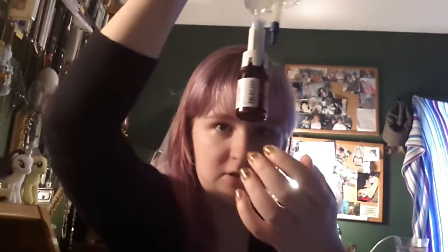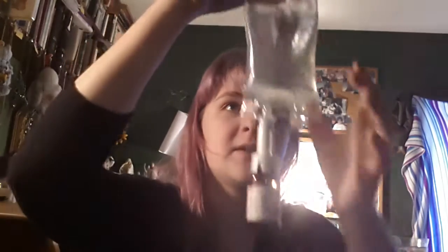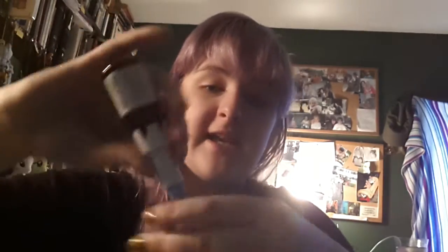So flip it back. There's usually still a tiny bit of liquid left in the vial no matter what you do — I wouldn't worry about that too much. What I like to do, just to make sure none of it goes back in the vial if I squeeze the bag accidentally, is pull the blue and white part apart and take it out of position by clicking it — you can just leave it on. When you're done with it, meaning when the bag is empty, you do want to take it off because it should be put in a sharps container, since it has a needle in both ends. That would be unpleasant for anyone working with your garbage.